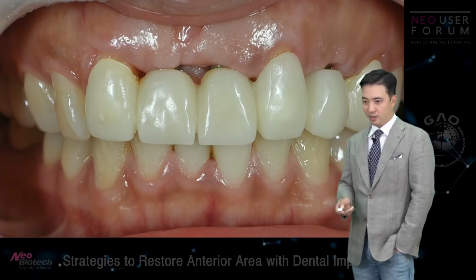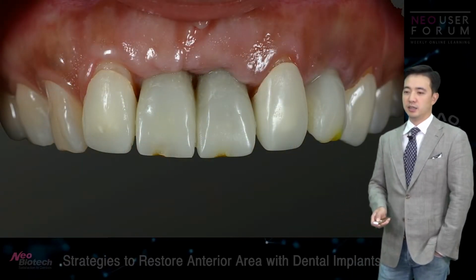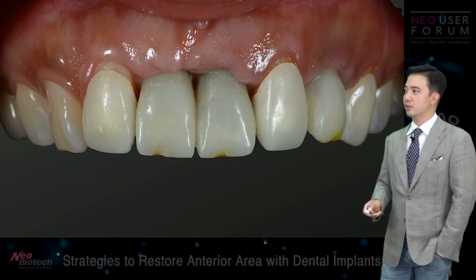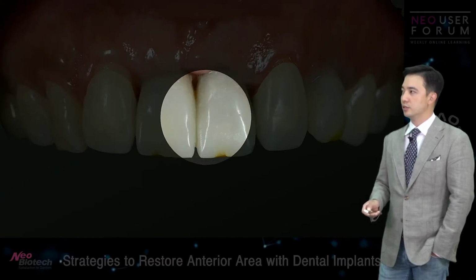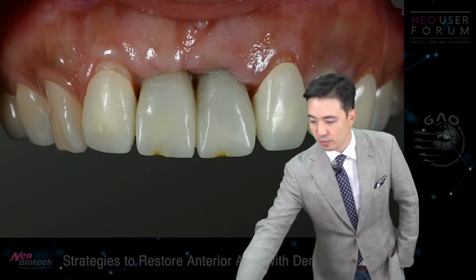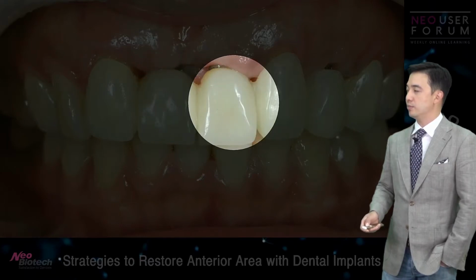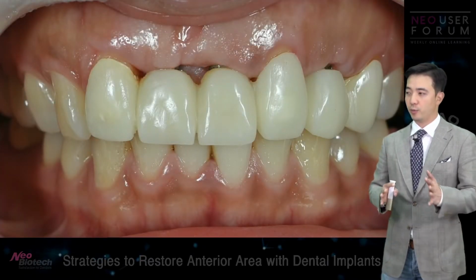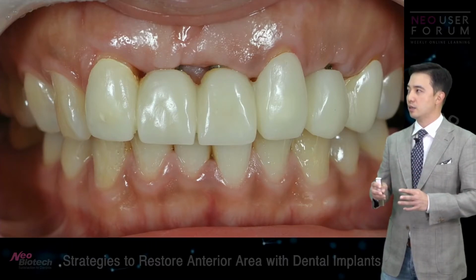However, when we try to connect those provisional restorations on the implant. So this was initially part of a, so these two were Pontics. Let's go back a little bit. Yeah, so these two were Pontics for the waiting period before number 11 and 21 got osseointegrated.